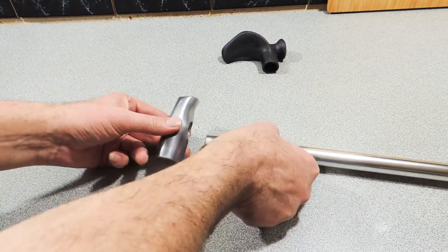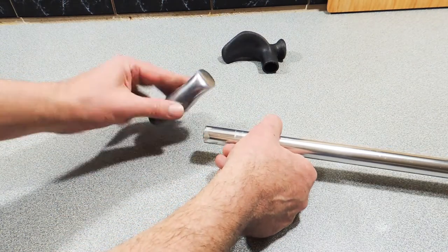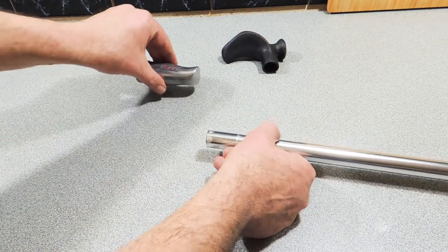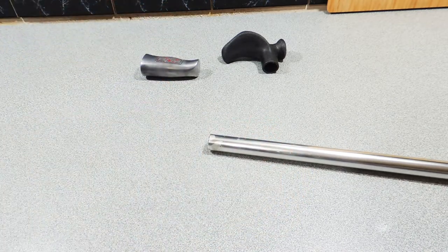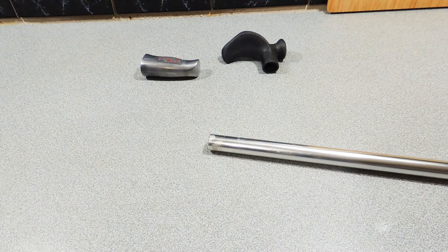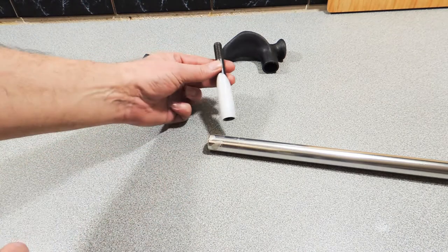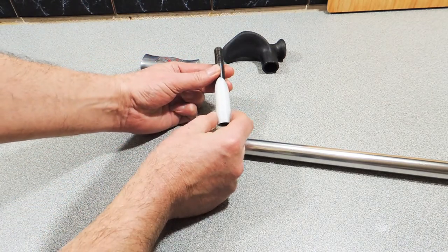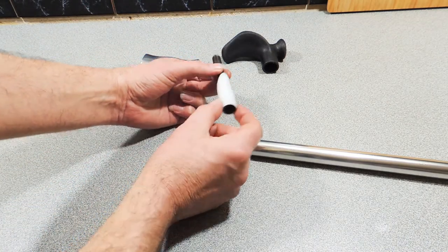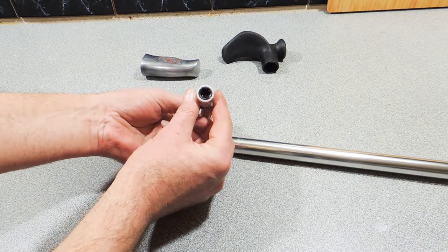Now all we have to do is try and work out how we can get that onto the stick itself. Alright, cue in an old customer of mine from about 20 years. He is a university qualified engineer and he got some nylon, turned it down so it would fit inside the tube.